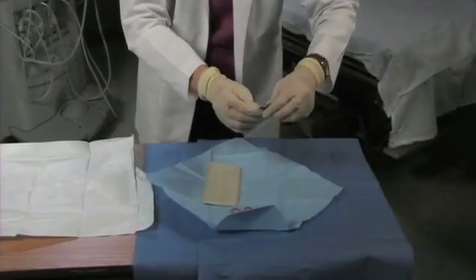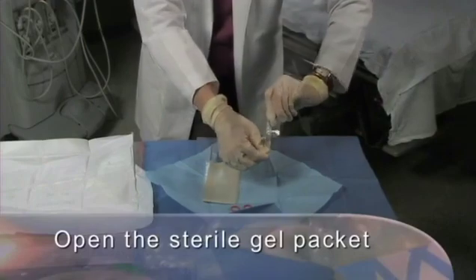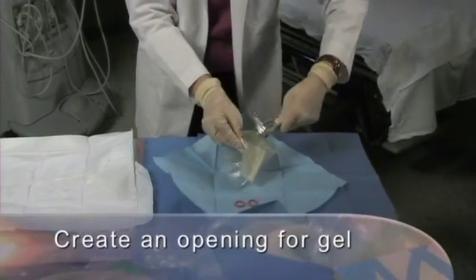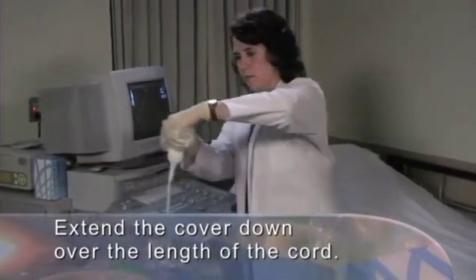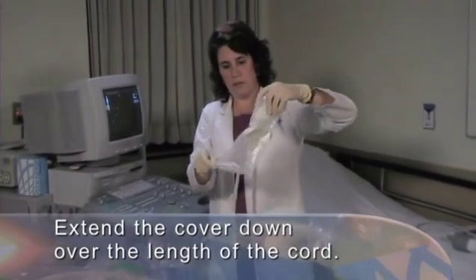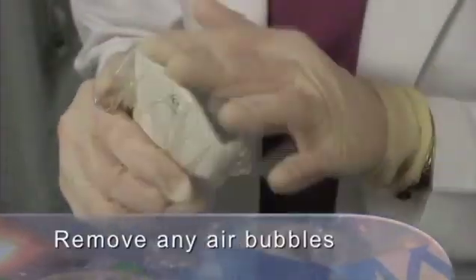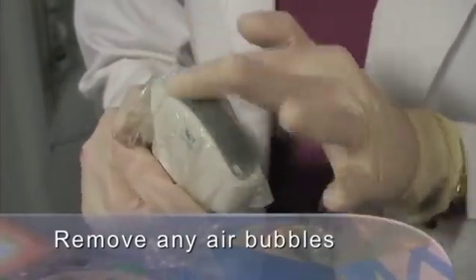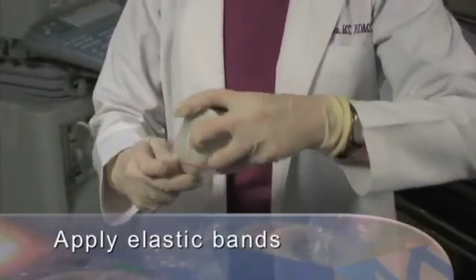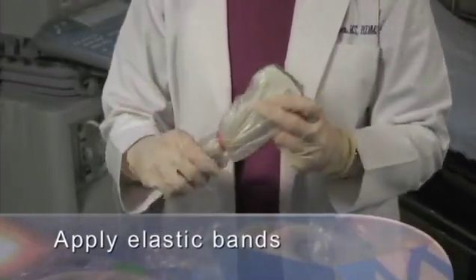Using the single person approach to applying a general purpose transducer cover, open the sterile gel packet. Then create an opening in the cover and apply gel. Once the gel is in the cover, place over the array of the transducer and extend the cover down over the length of the cord, ensuring proper sterile technique. Check carefully and remove any air bubbles that are between the transducer face and the cover. While remaining in the sterile field, apply enclosed sterile elastic bands to secure the cover in place.